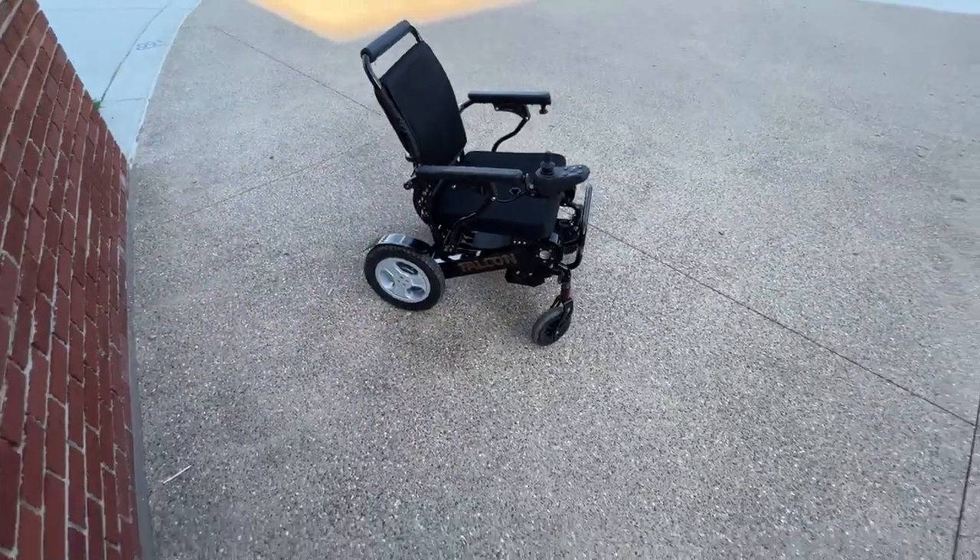Of course I have brushless electromagnetic motors. I have a very quick release clamp to allow me to fold the chair really within a second, and I have the DuraShox. I can put the chair in freewheel mode when it's off, so I can make this into a push wheelchair very easily, or with a couple of flips of a switch I can make it into a power folding wheelchair.